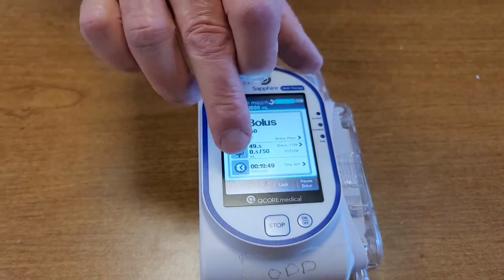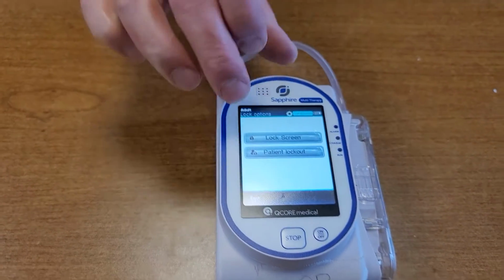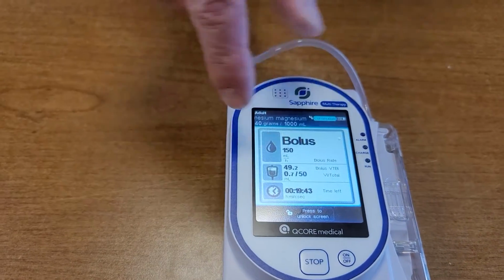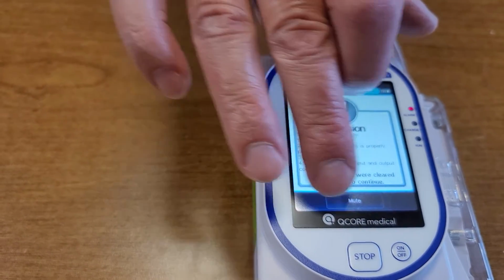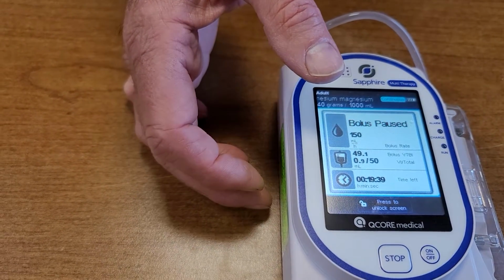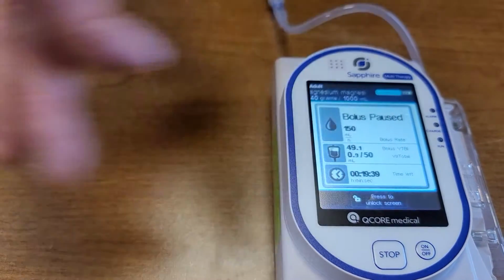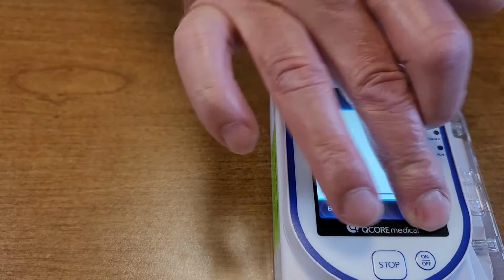You can lock these screens. There's a lock button. If you hit lock, it gives you 2 options. You can lock the screen right here. So you have to press to confirm you want to unlock it. Oh, settle down. Why is it giving me a... Oh, probably because it's kinked right here. Okay, so press to unlock it. In this case, if I press to unlock it, it's going to say, do you really want to unlock it? I'm going to say, okay.